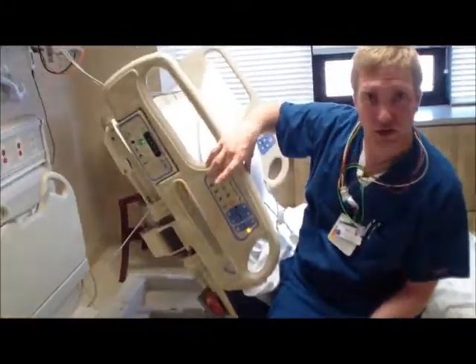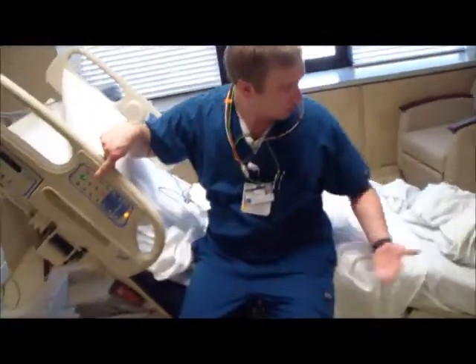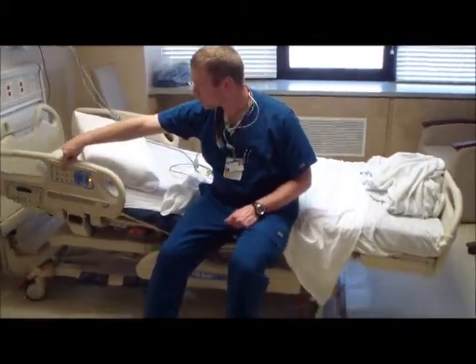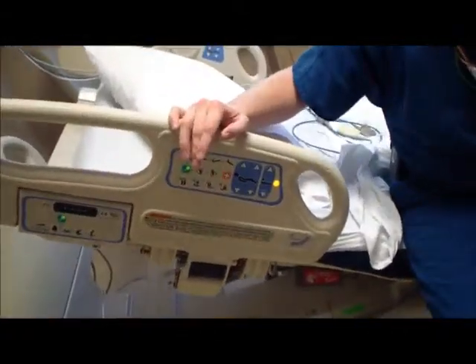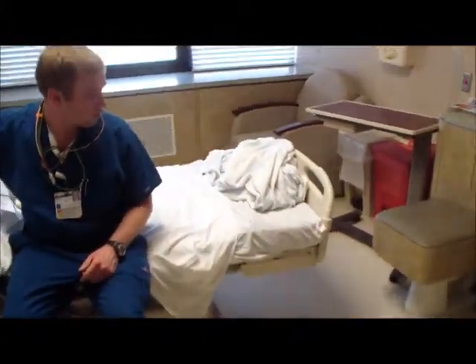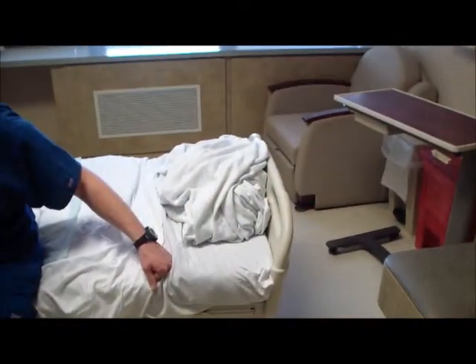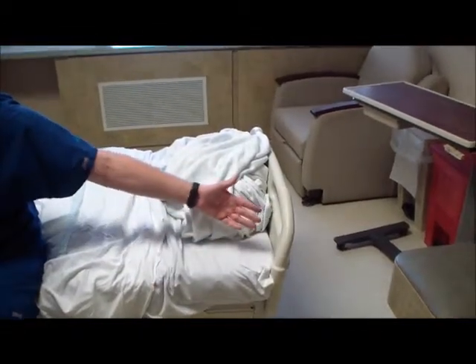In order to flatten that out, we're going to make sure that green key is activated, and we're going to hit the flat button there. It's going to bring the head of the bed down and bring the feet up. Okay, other options on this bed, we can extend the end of the bed or shorten the end of the bed, making sure that our green key is active. This one shortens the end of the bed, this one lengthens the end of the bed. So it brings it closer this way, or extends it out.